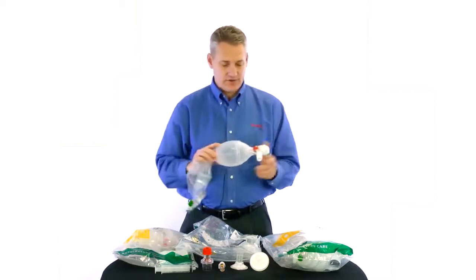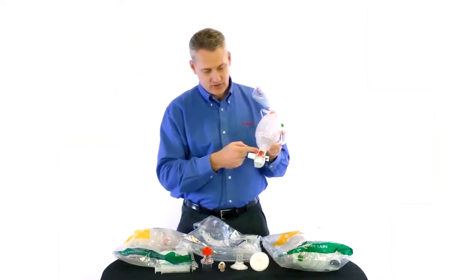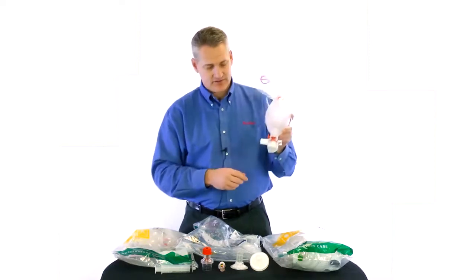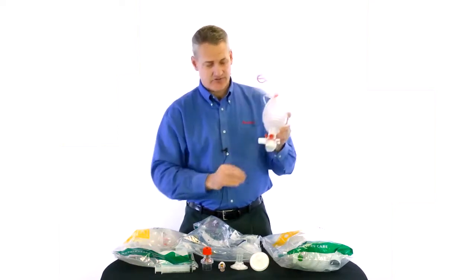As we move forward on the bag, you will notice we have a 40 centimeter H2O pop-off, which is standard on all pediatric bags. Currently it is in the non-overridden position. To override this, it clips and flips up just like that. To disengage the override, which is the way it comes out of the package, you just flip it back.